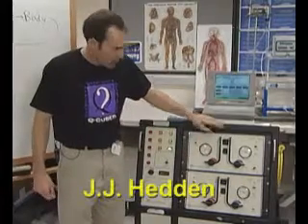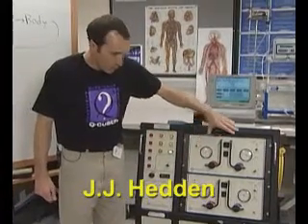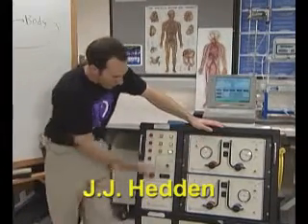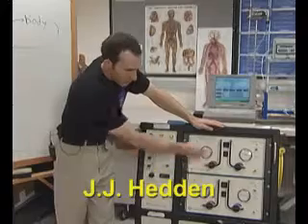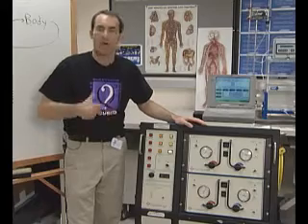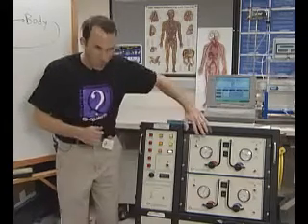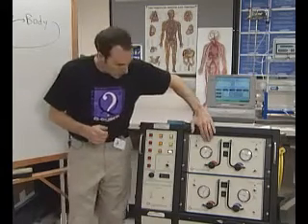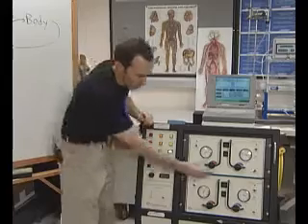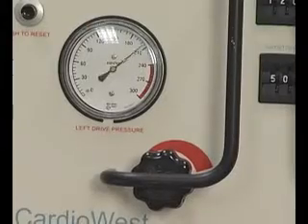The front console area of the device is where we make changes. We assess the graphs, discover that changes need to be made, and this is where we make those changes.